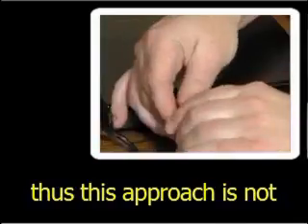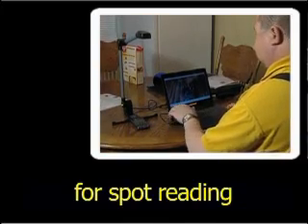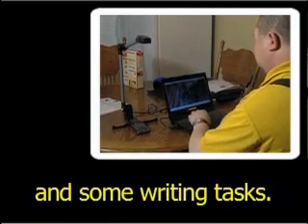Thus, this approach is not practical for continuous text reading, but it works well for spot reading and some writing tasks.